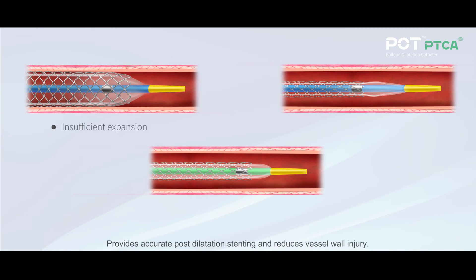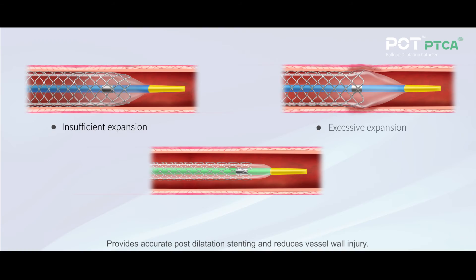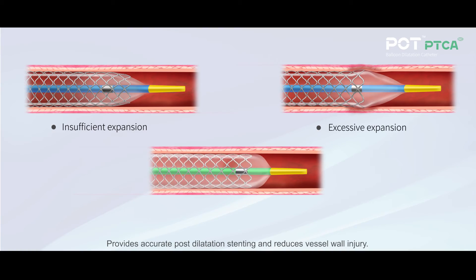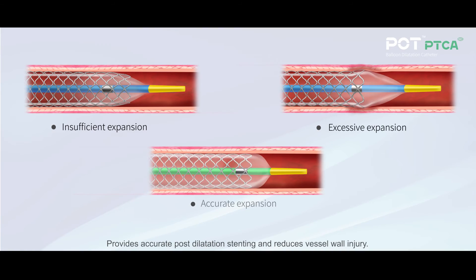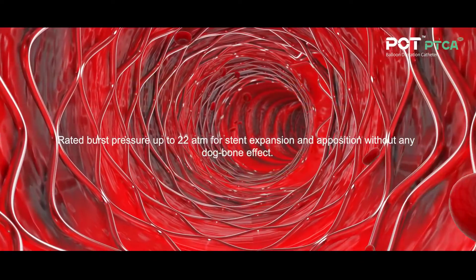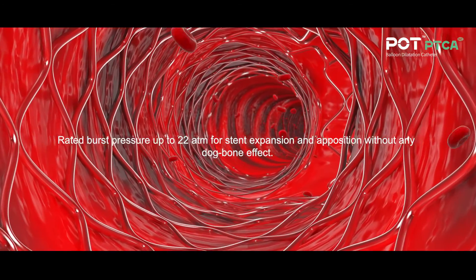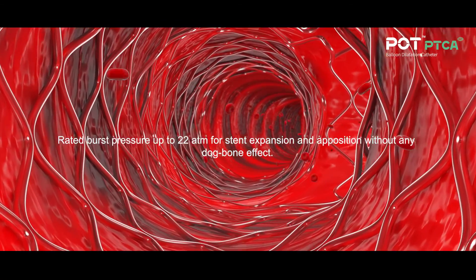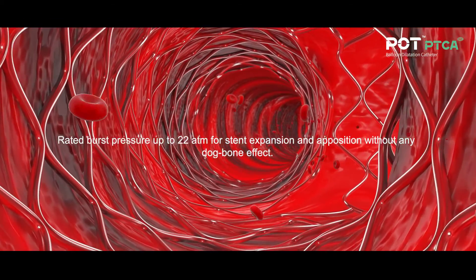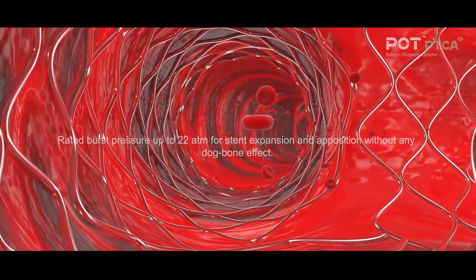Provides accurate post-dilatation stenting and reduces vessel wall injury. Rated burst pressure up to 22 atmospheres for stent expansion and apposition without any dog bone effect.